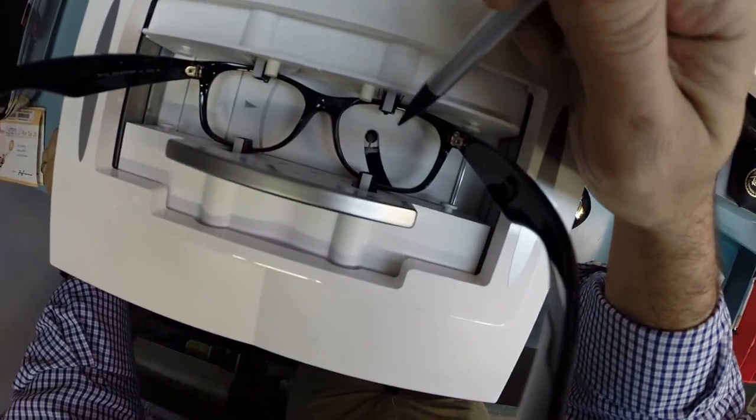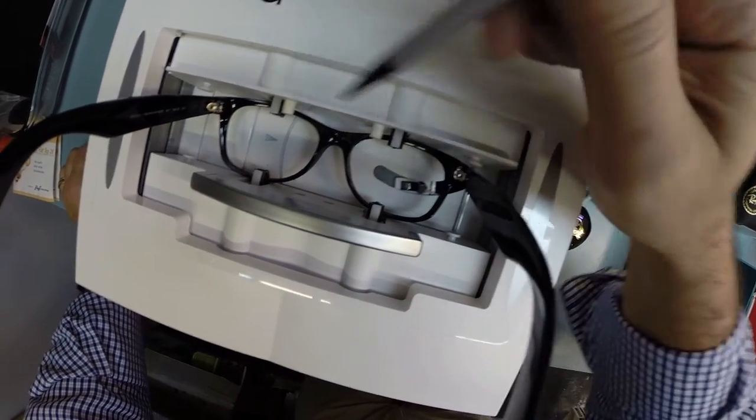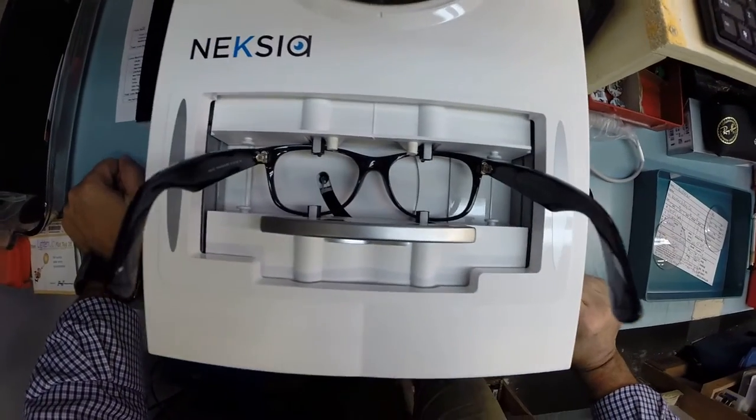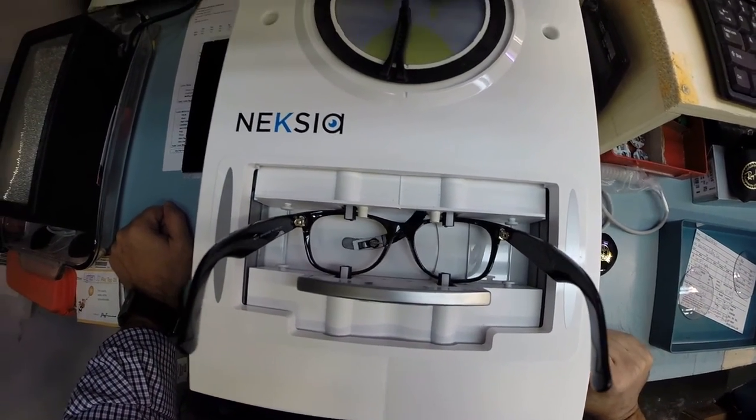But everyone wants to know what shape to cut. This stylus is going to come up and it's going to trace the shape of the right lens before moving over and tracing the left here at FreePrescriptionLenses.com where I put the dot in it like that.